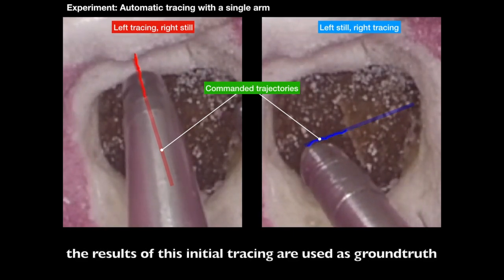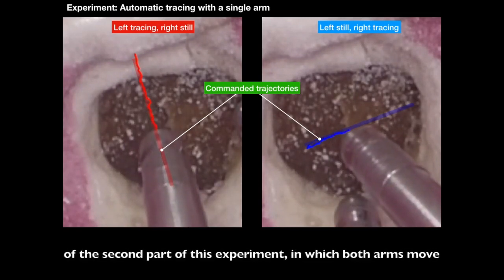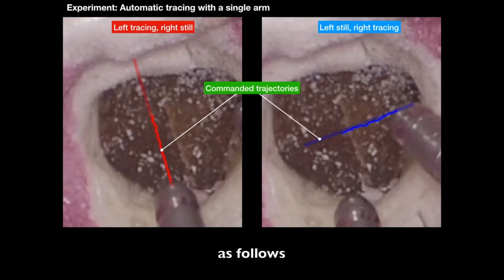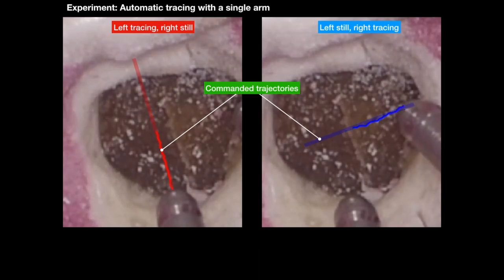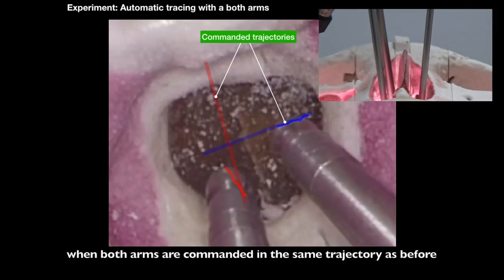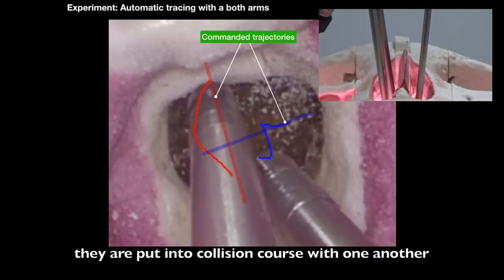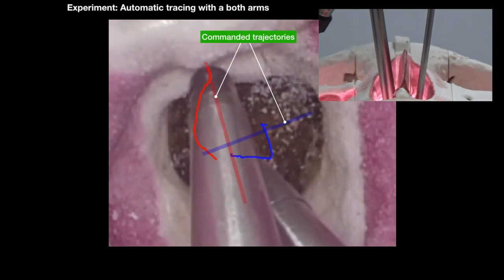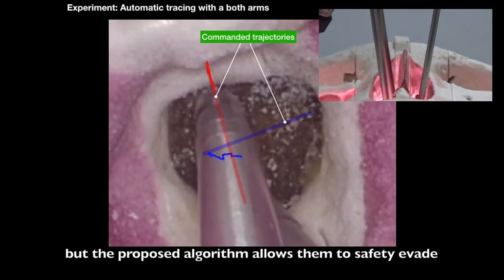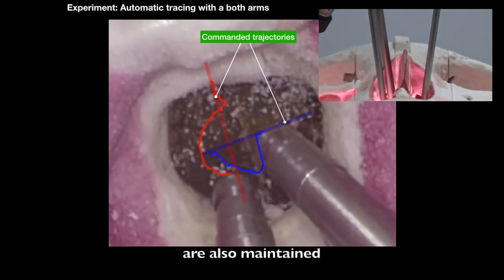The results of this initial tracing are used as ground truth of the second part of this experiment, in which both arms move as follows. When both arms are commanded in the same trajectory as before, they are put into collision course with one another. But the proposed algorithm allows them to safely evade the collision between moving shafts, while other constraints are also maintained.